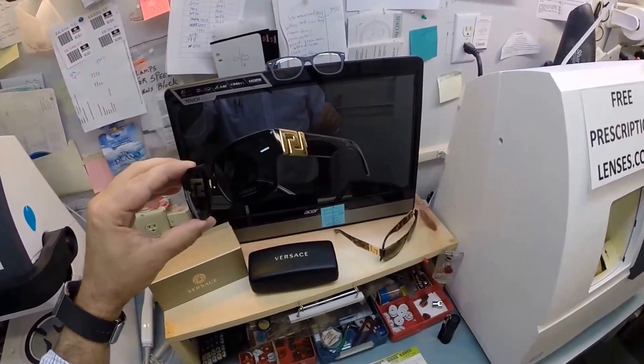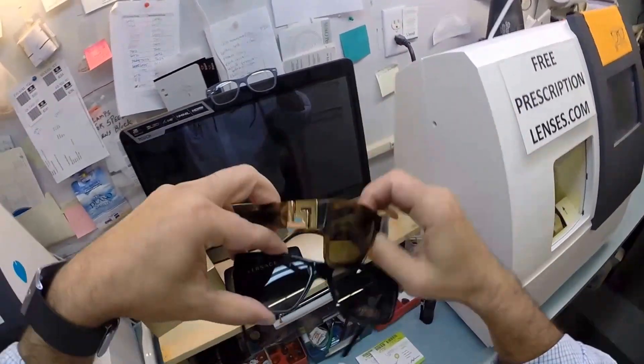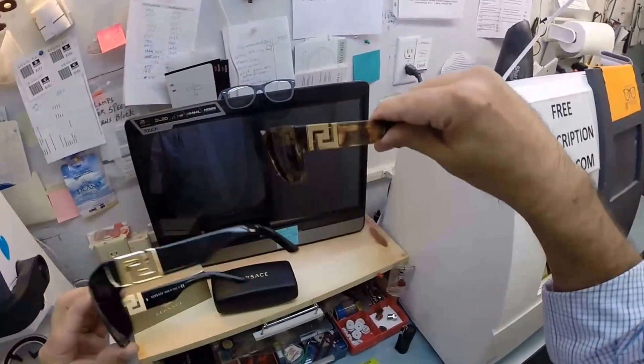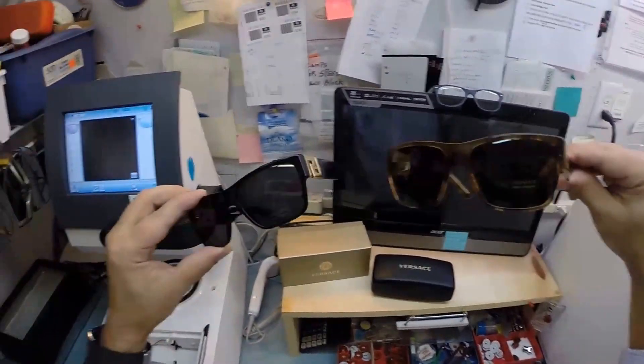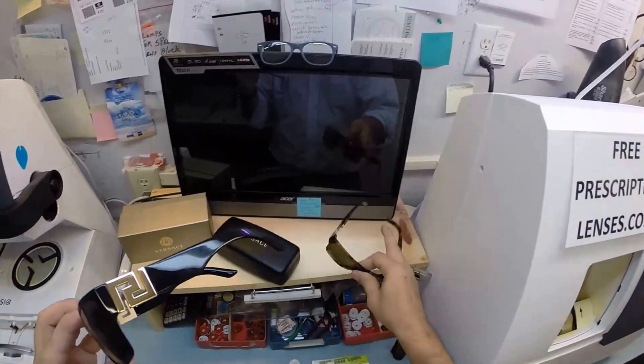This is your frame as we get started. I also stock it in the striped Havana and a sand or beige opal color, but these are the two I stock. I can also get any other color for anyone else watching.